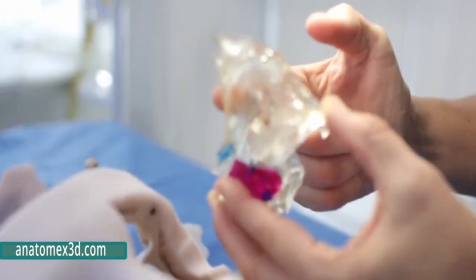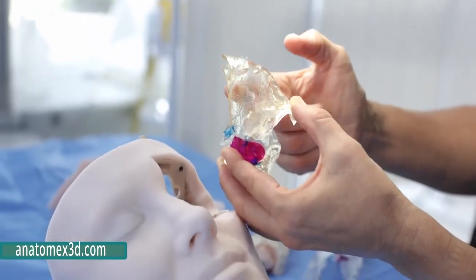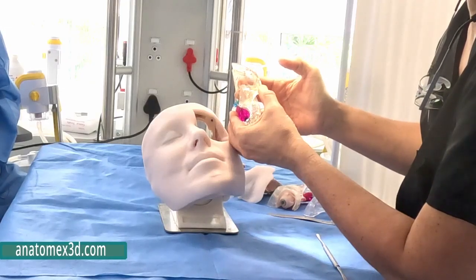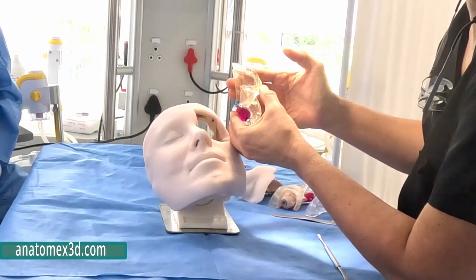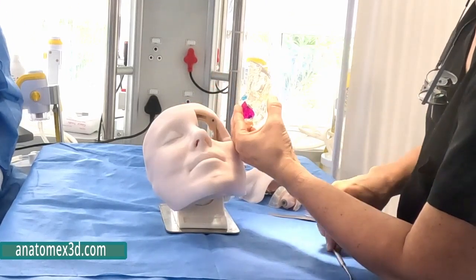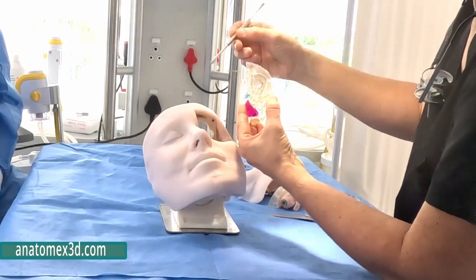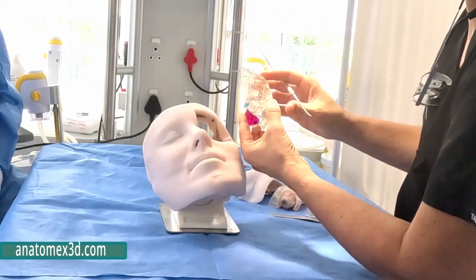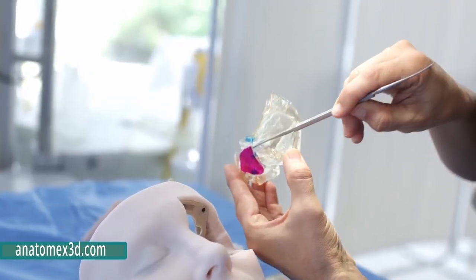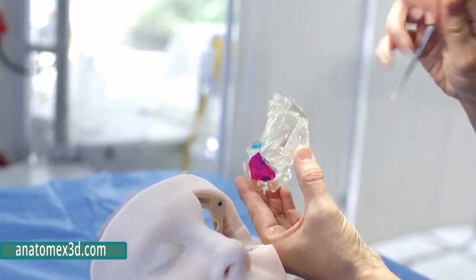the lining, you can see my finger here, how thin that bone is, and this is a real life situation where this bone is almost transparent, and you can often see the dura or the lining of the brain through there, and this would give you access to the whole anterior cranial fossa. Then you have your lateral wall of the eye, and you have your inferior wall. The medial wall of the eye is still within the main model. So this is really easy to explain to people: the superior orbital fissure, the inferior orbital fissure, and where the optic nerve will come through.